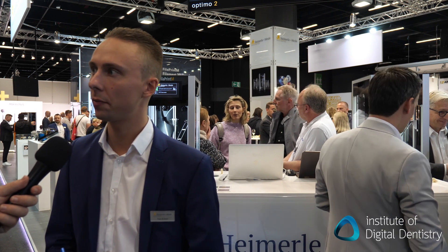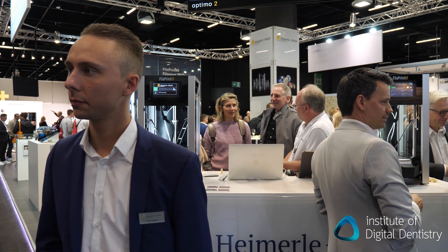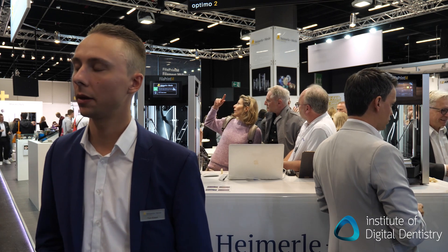So how many materials do you have in total? Five. Our tooth colored material for partial dentures, our pink material for partial dentures, our tray material, and two different materials for casts. With the tooth material for the dentures, what's the strength of that — is it for a temporary or permanent solution? It's only for a temporary solution, so it's only for 30 days.